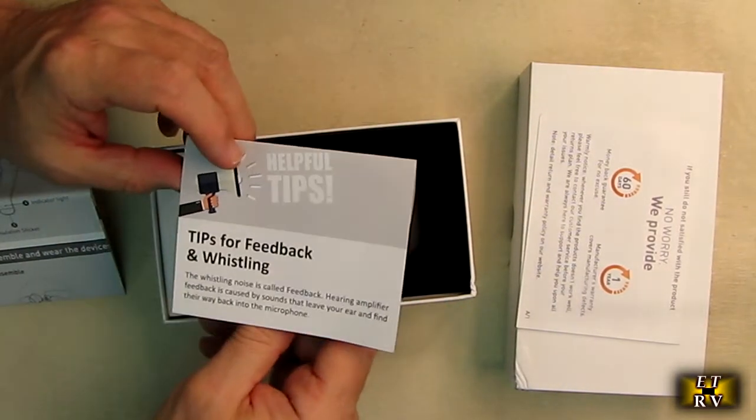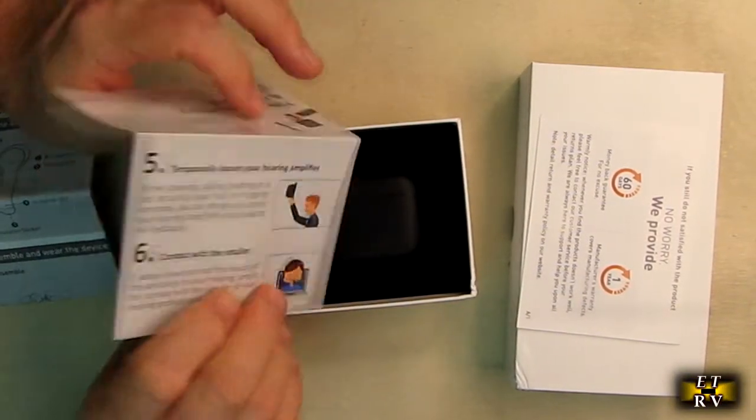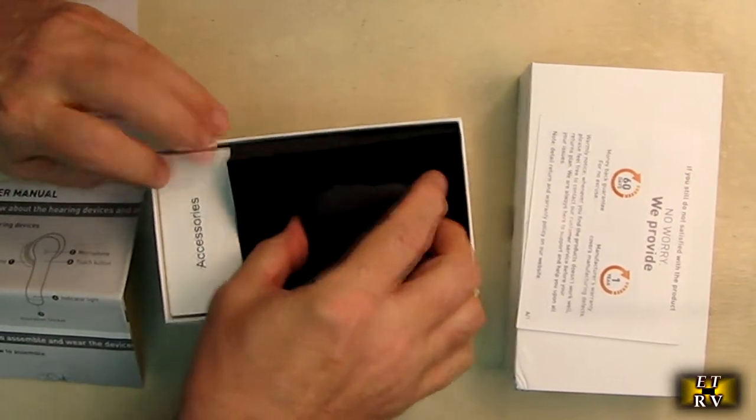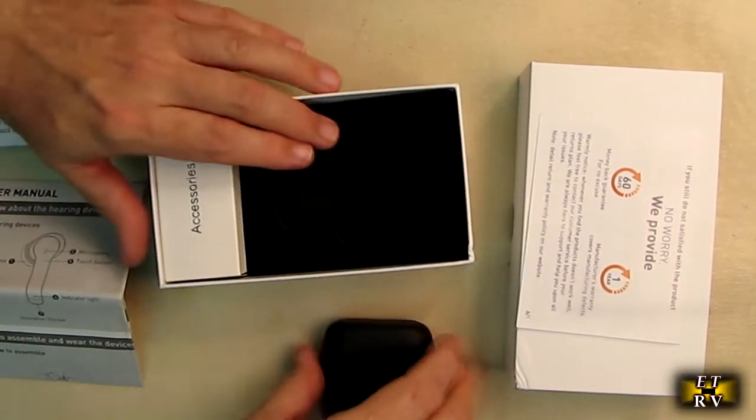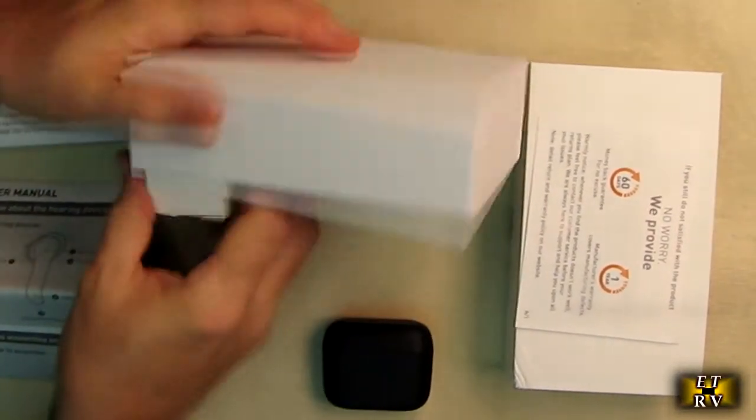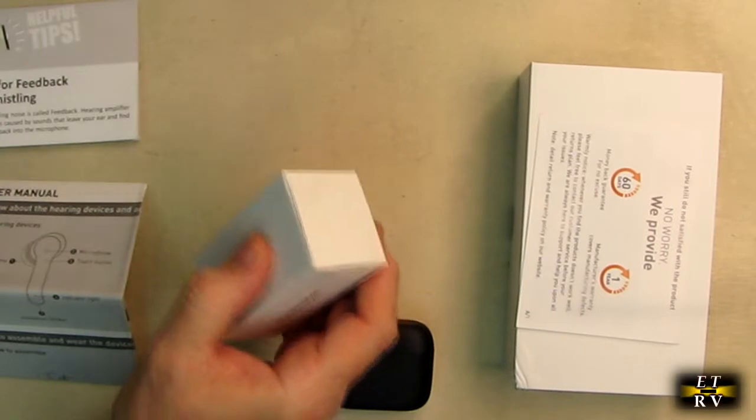Here's the actual unit protected in foam nicely. Then there's a little accessories box. Let's see what's inside here.